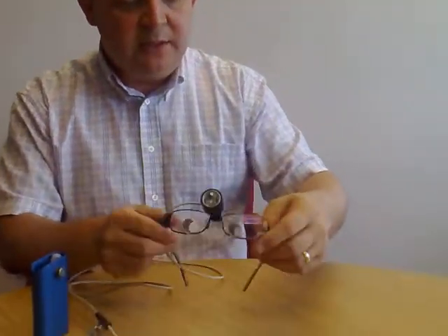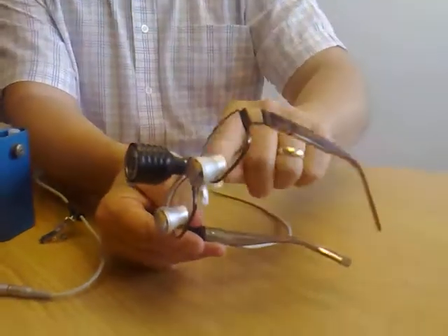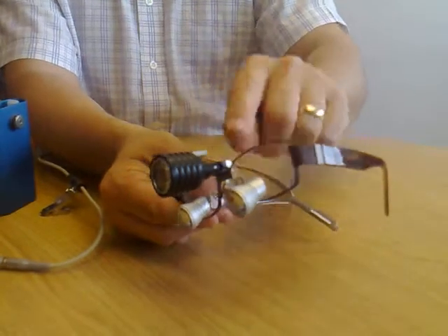Hello there, this is Andrew Lindsay. I'm just going to quickly take you through OptiDent's POV unit. The POV unit is a light emitting device that is fitted to the fronts of a pair of loops. As you can see here, it's attached around this front part of the glasses there.